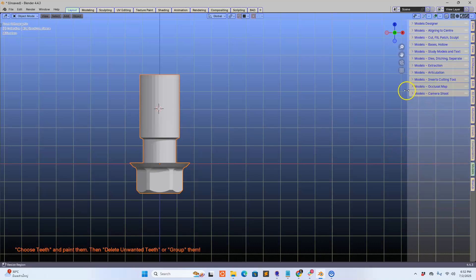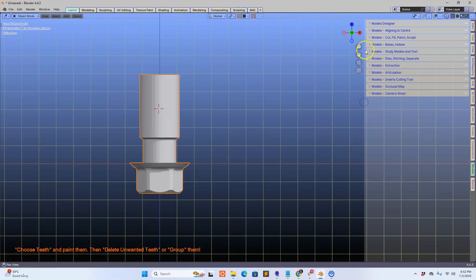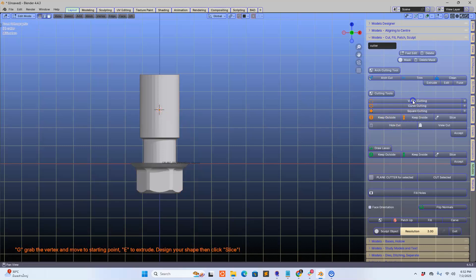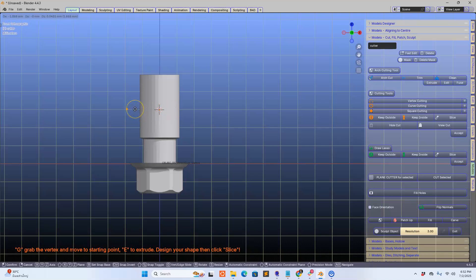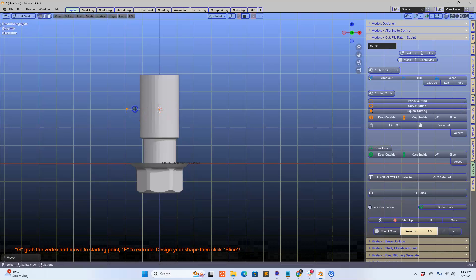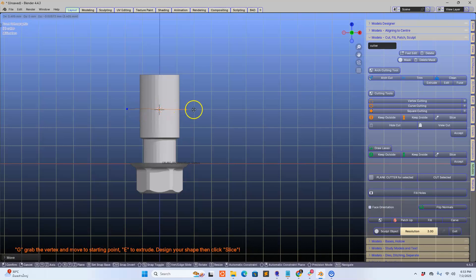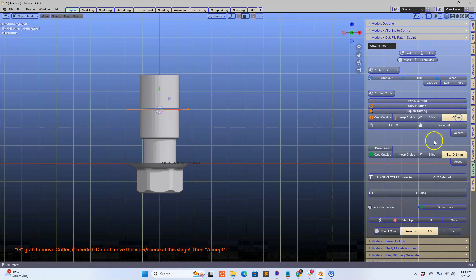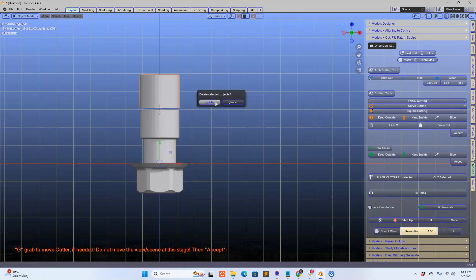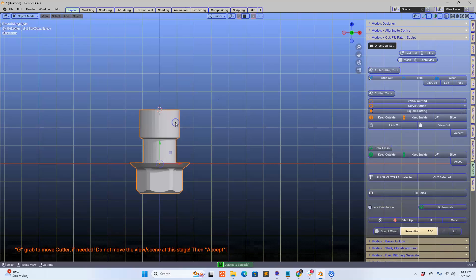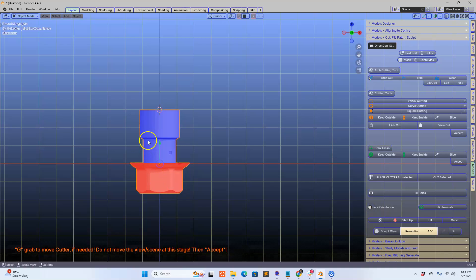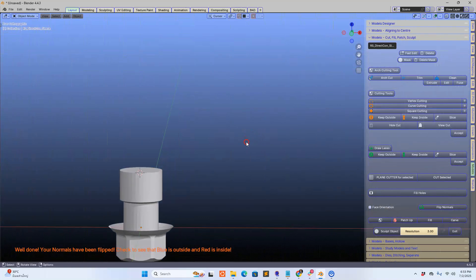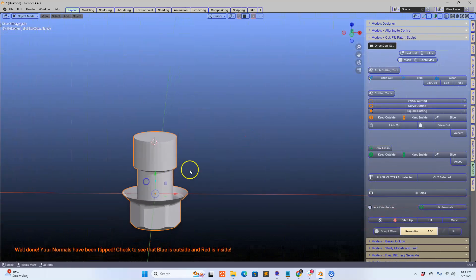I'm going to go to the model designer and we've got heaps of cutting tools which help you in many different situations. So I'm going to use the vertex cutter and extrude it and cut the top off, slice it off, and accept and delete it. Now I do know that with the component module the face orientation has to be red on the inside and blue on the outside, so we're going to flip the normals. This is something that one always has to watch out for.